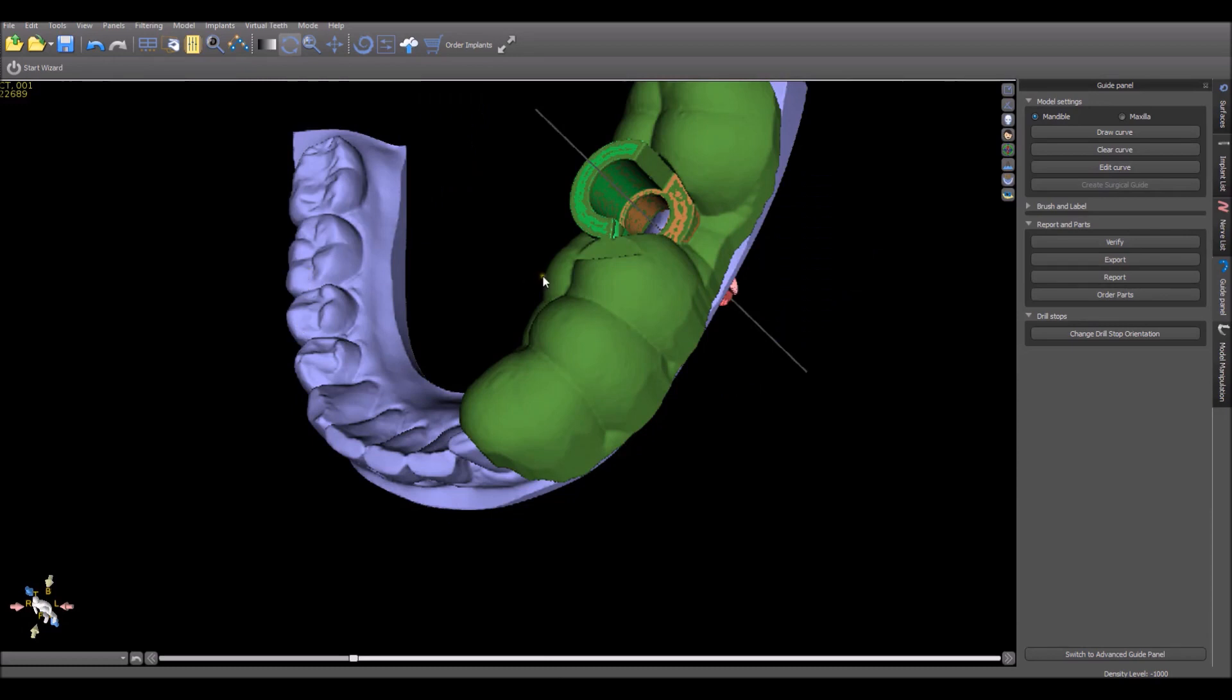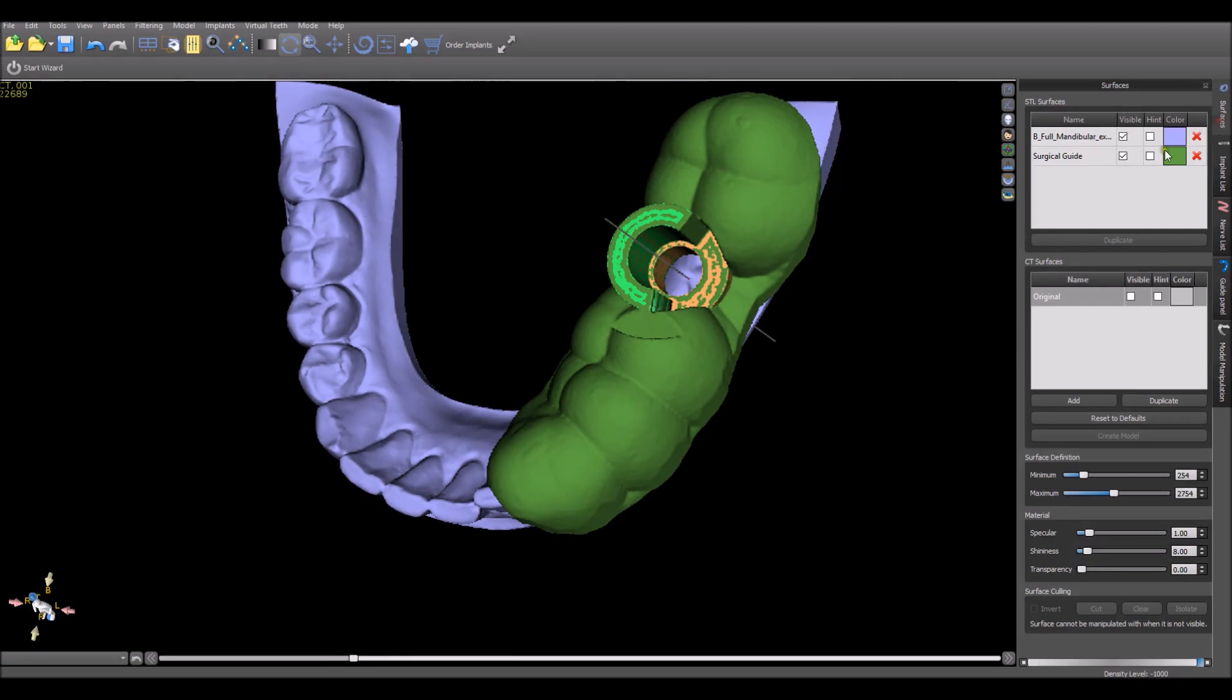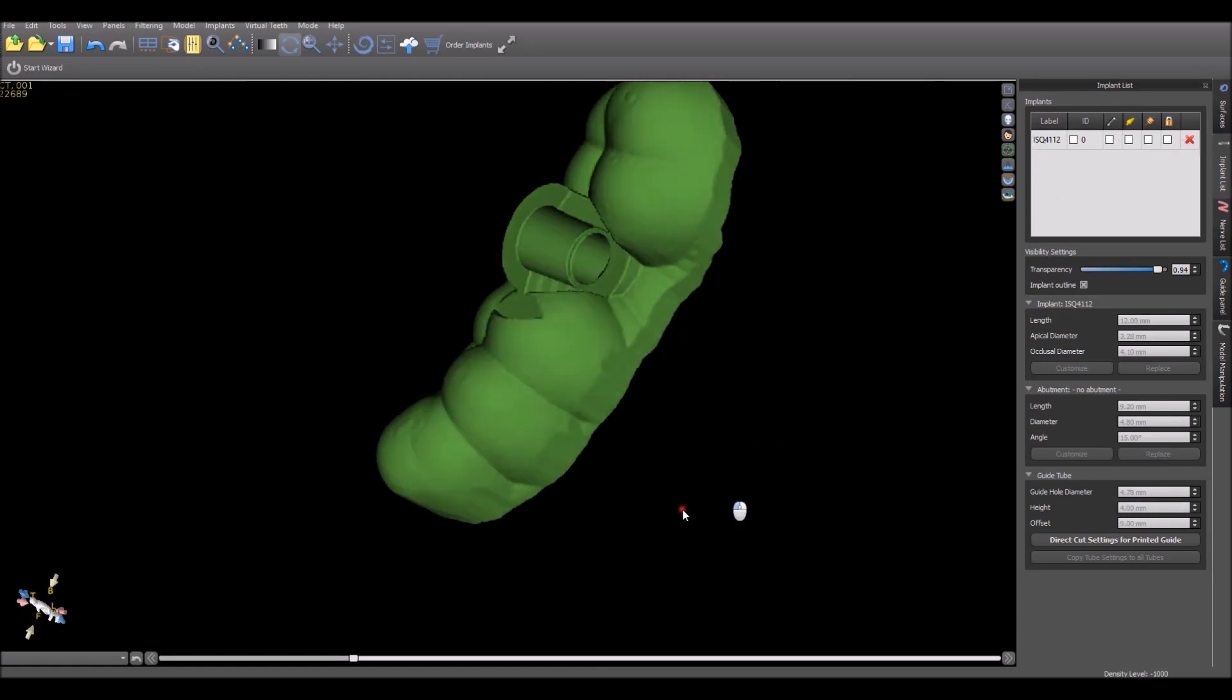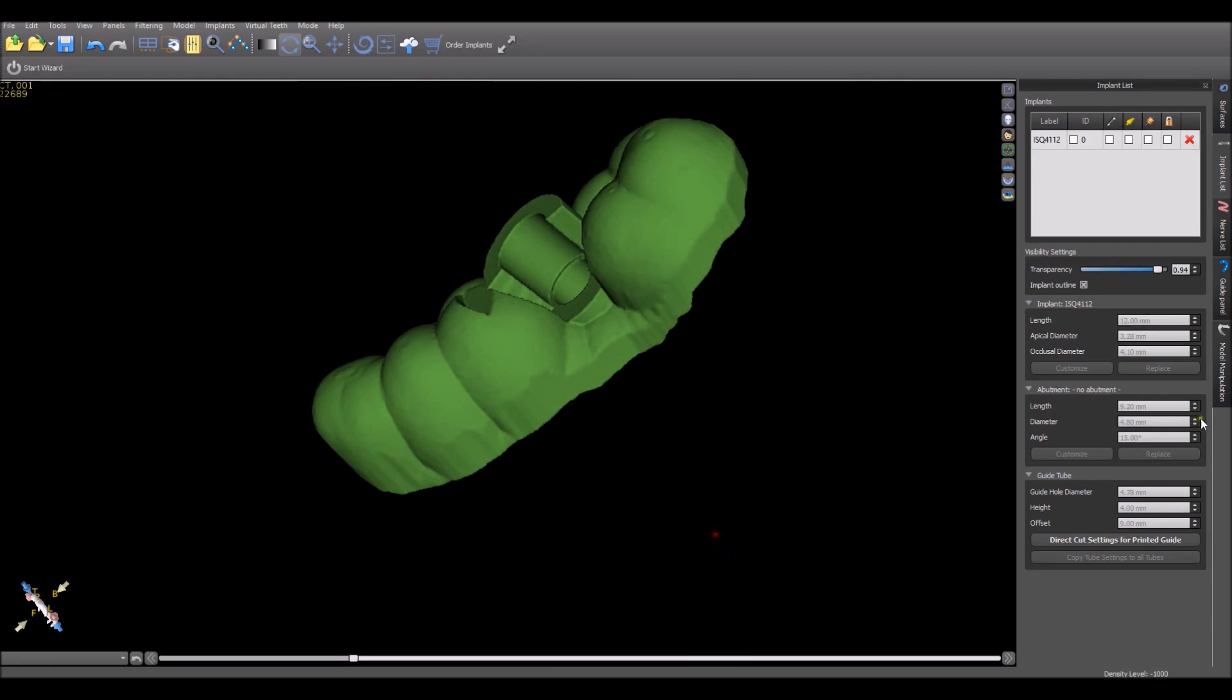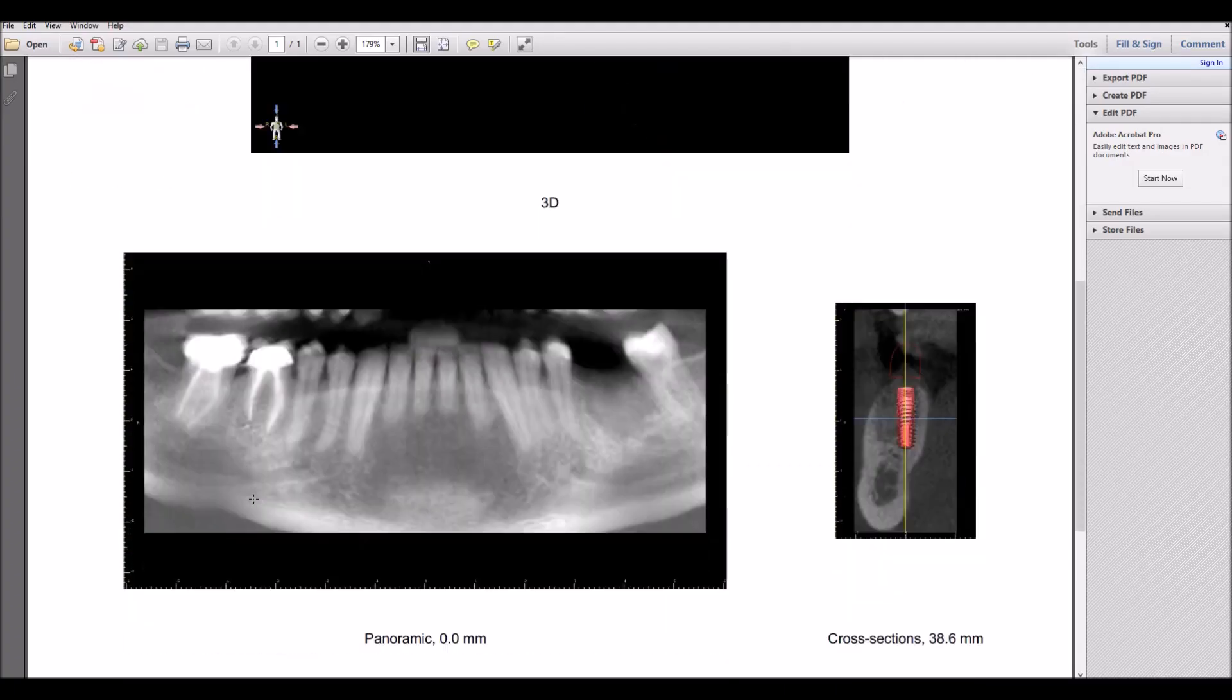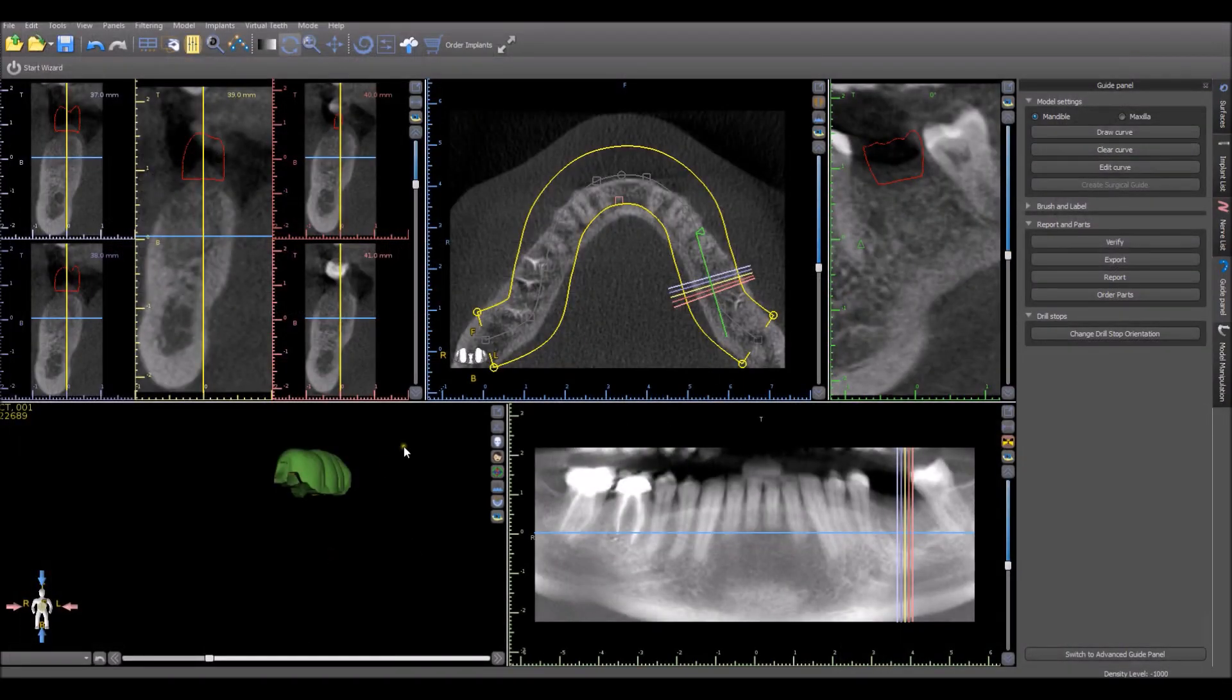What shows up on the screen is the completed surgical guide. We could go back to Surfaces and here we have the surgical guide showing up. We could toggle off the model and the software guide tube and our implant if we like. And here is our completed surgical guide. If we go back to the Guide panel, here we can export it, generate a report. The report contains some basic information and images and drilling depths. And we could, of course, save that and use that as well.